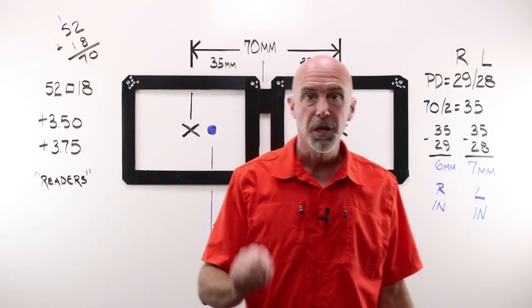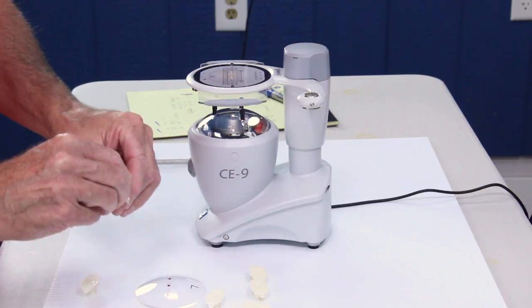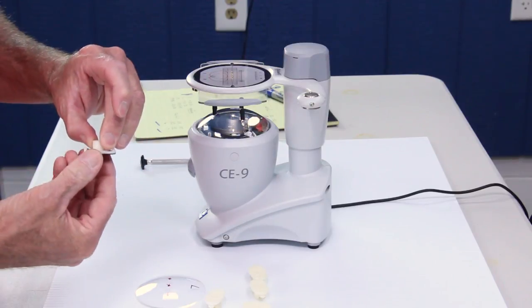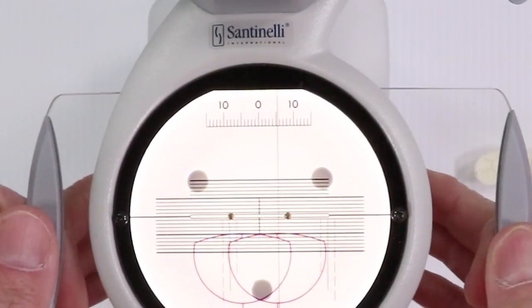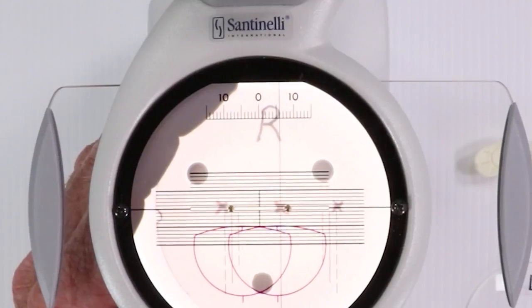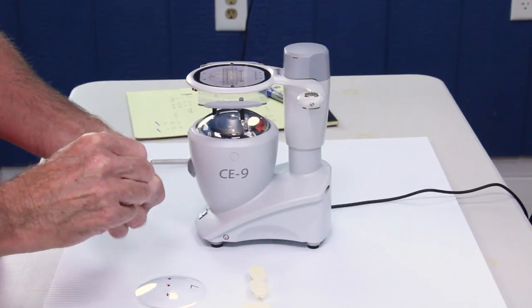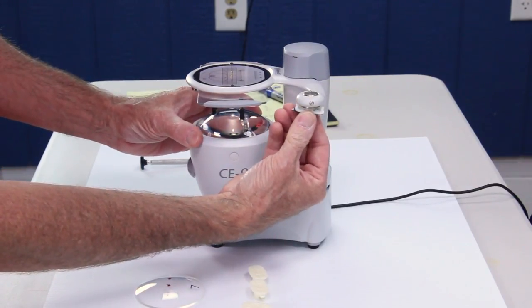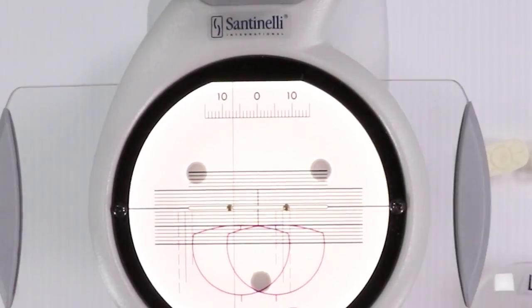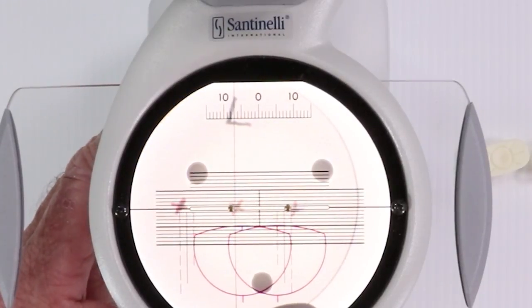Here is what it would look like in the blocker. We have got six millimeters of movement in our right, as we'll go ahead, load up a block. Notch. Good. We're going to move that over, six. We are going to take our right lens and move it right for in decentration. That looks wonderful. Notch up, tongue right. Oh, I knew there was something I was forgetting. I'll get to it in just a second. And we move seven for the left. That's five. That's six. That's seven. Seven, that would be zero. I'm moving that over seven millimeters.